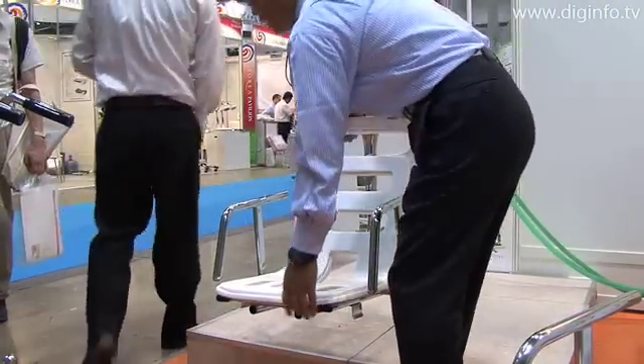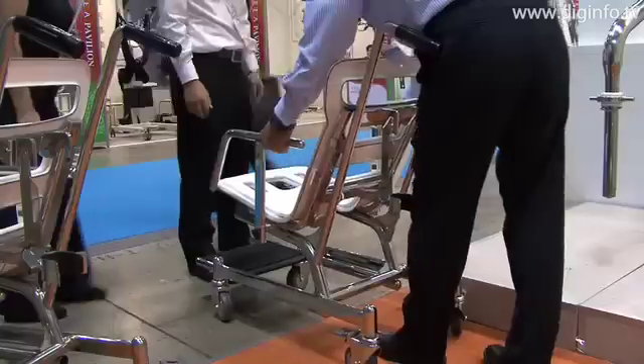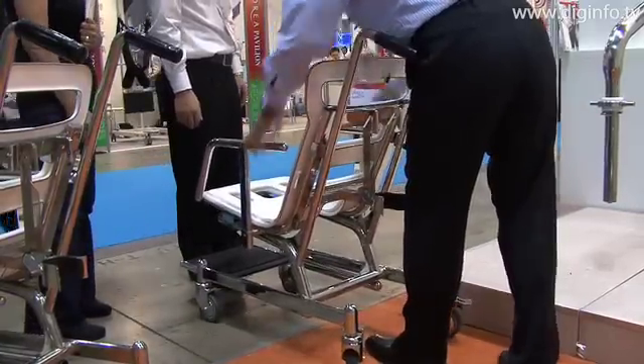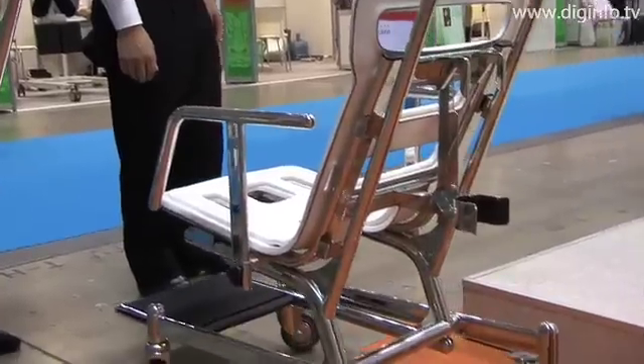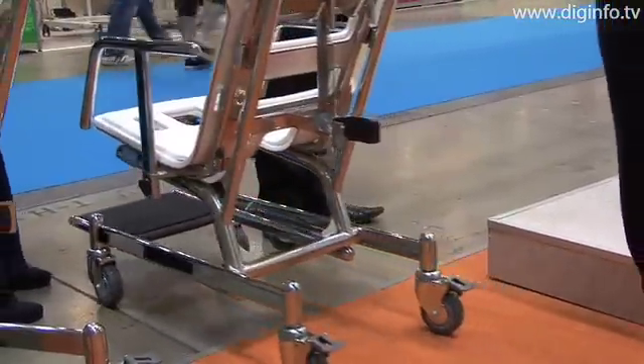The Universal Lifter features a stainless steel body and a seat made of fiber reinforced plastic, so it will always maintain its clean form. The installation work and water connections are also easy to do.